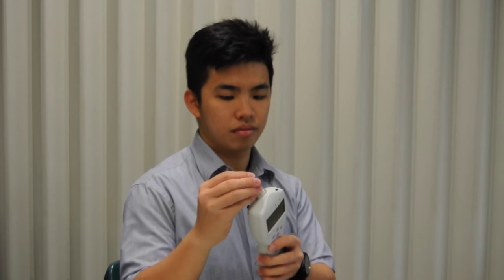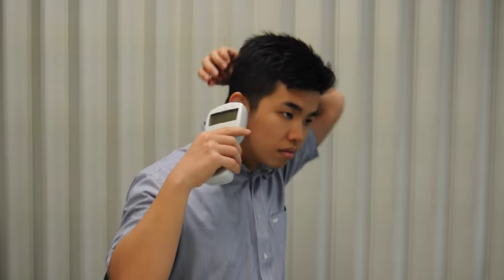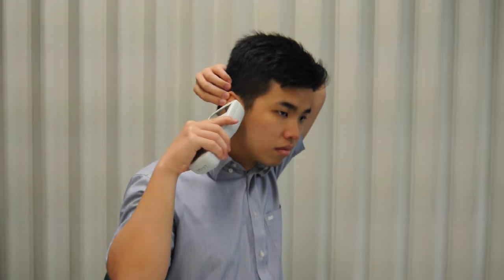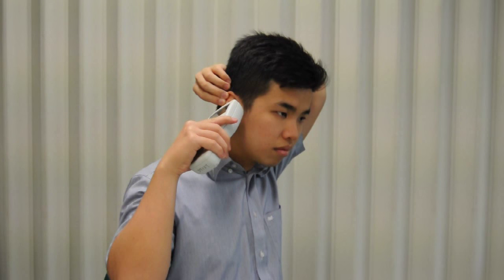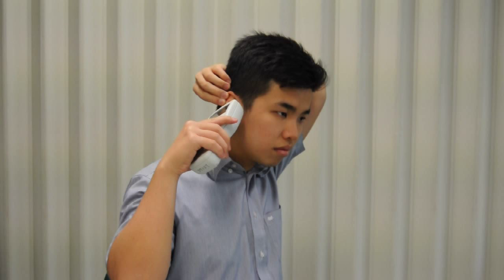Clinicians should conduct tympanometry on themselves at the start of every day to ensure that your equipment is working properly. If the results are not similar to your expected tympanometry values, use a different tympanometer. Ensure that your equipment has been recently calibrated and undergoes repairs if faulty.